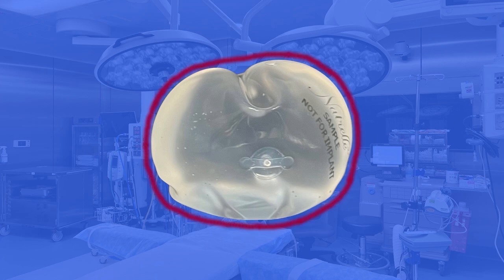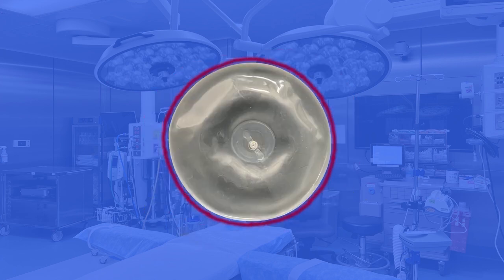Here's what happens with saline implants. You get a little hole, a little tear. The saline leaks out, and initially that saline is contained within the scar tissue, which we call a capsule. But the capsule is very permeable to saline. Saline just goes through the capsule, the body absorbs it, and it just goes away. The breast implant goes completely flat.